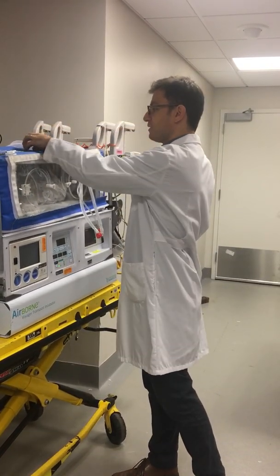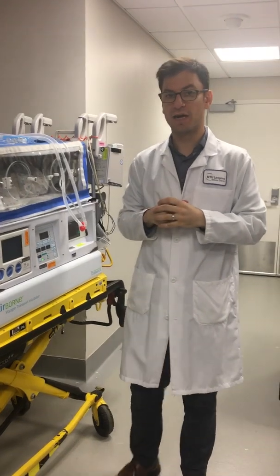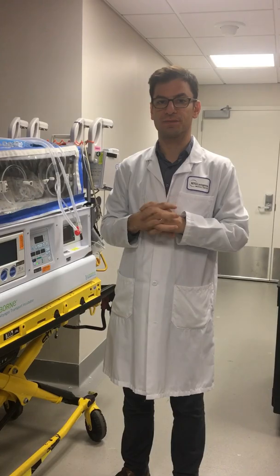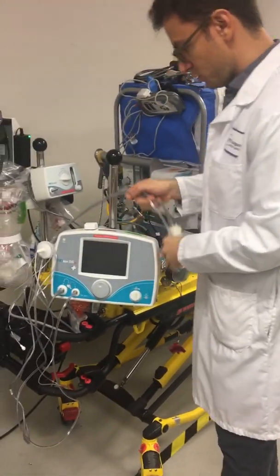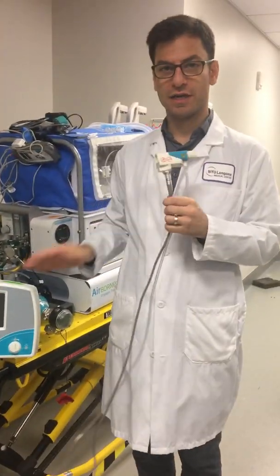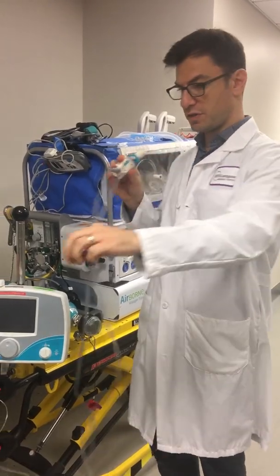With nitric oxide, the goal is always to deliver into the circuit and to sample in the circuit as close to the patient as possible. So the question becomes: how are we going to deliver the nitric oxide? We need to use our injector module — our nitric oxide system — to deliver into the circuit.